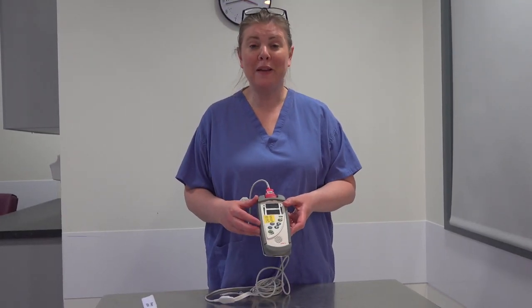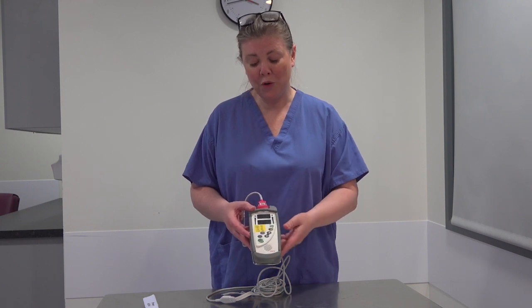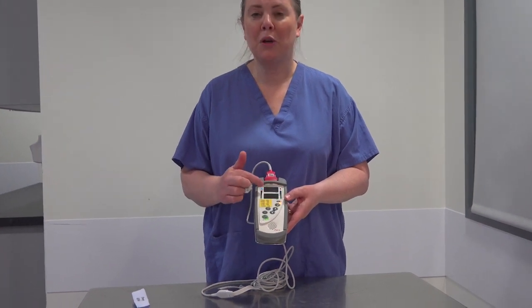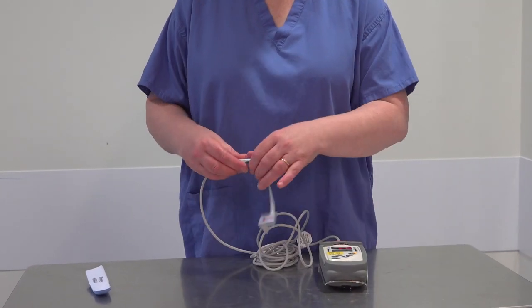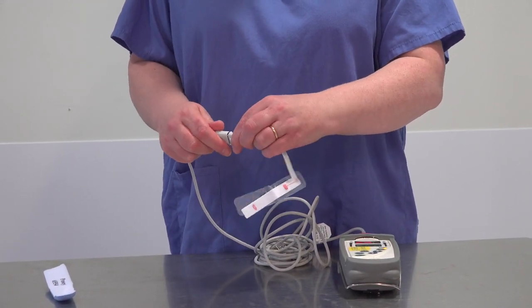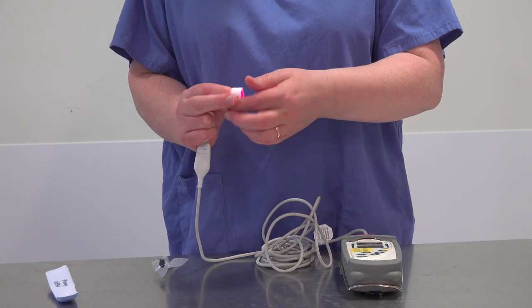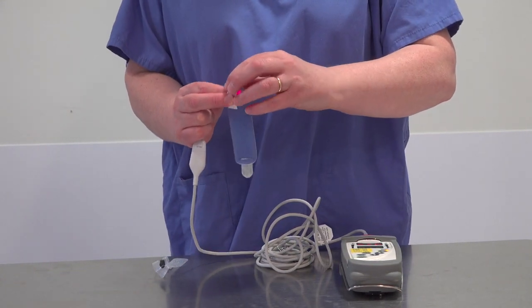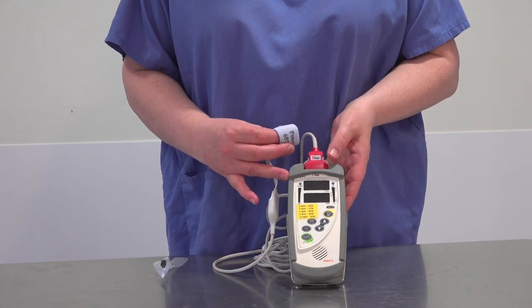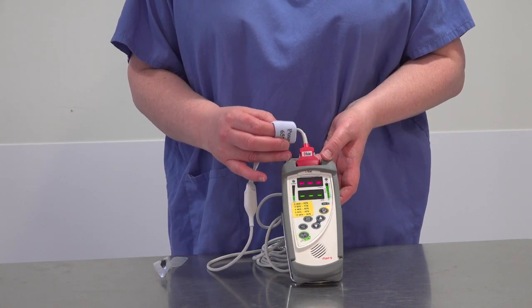This is the monitor which should be available in the clinical area for you to obtain pre and post-ductal saturations. In the left hand bottom corner there is a green button for the on/off — push that in and hold it and the monitor will automatically turn on. You have a cable which you attach to your saturation probe, and that's your saturation probe which you attach to the baby's hand or foot. I'm going to attach it to my finger, line up the two small red lines, pop the posy wrap on to prevent light interfering with the reading, and keep the finger very still in order to get a reading. It may take about 30 to 60 seconds to get an accurate reading.